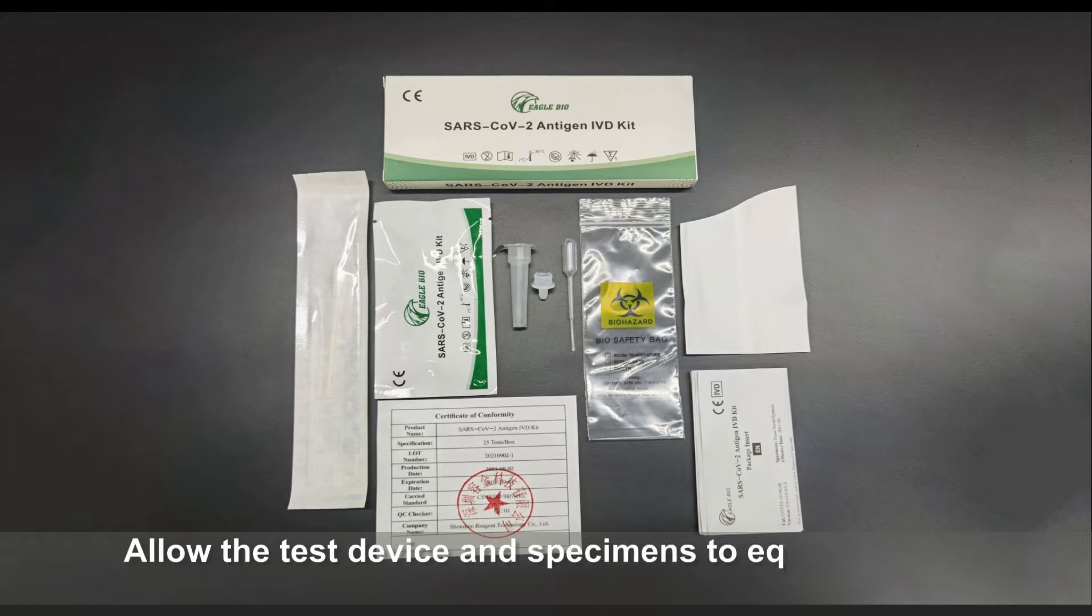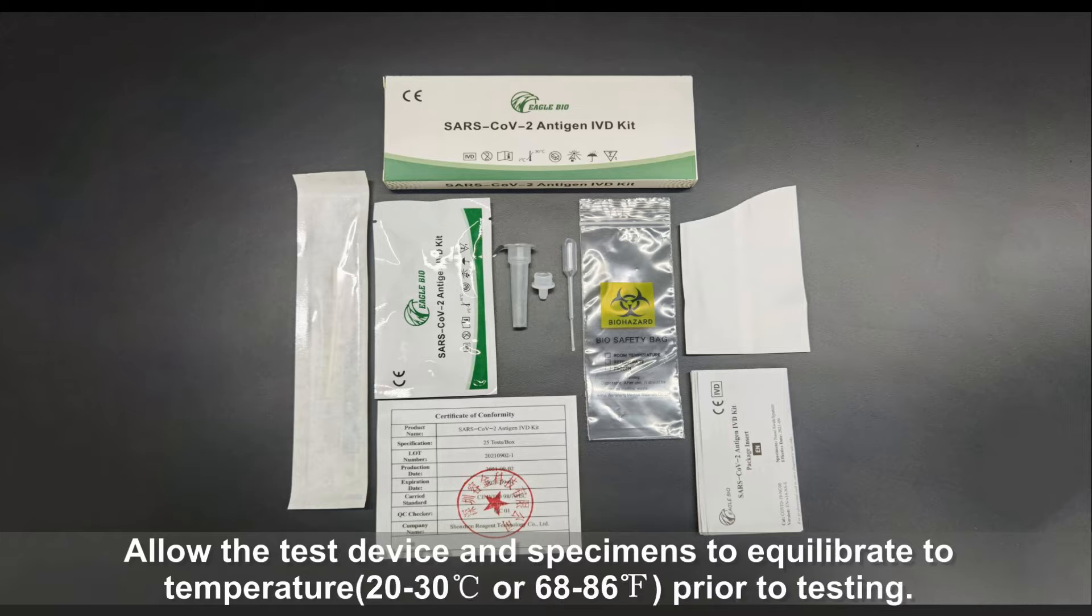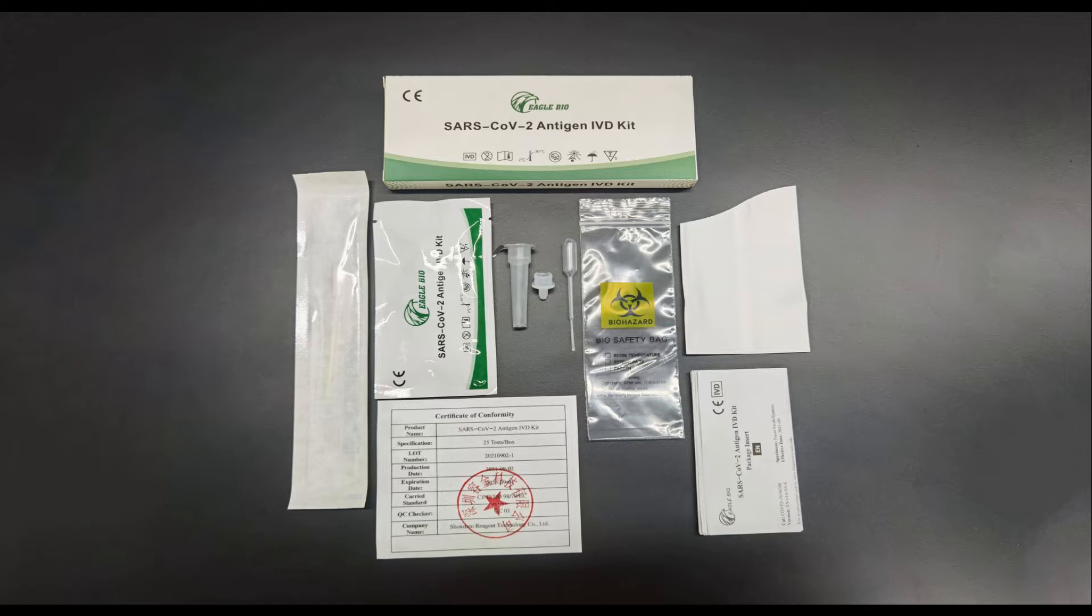Allow the test device and specimens to equilibrate to temperature 20 to 30 degrees Celsius or 68 to 86 degrees Fahrenheit prior to testing.